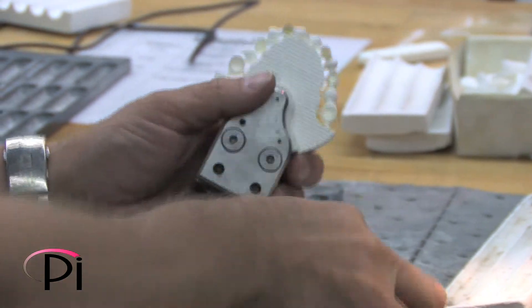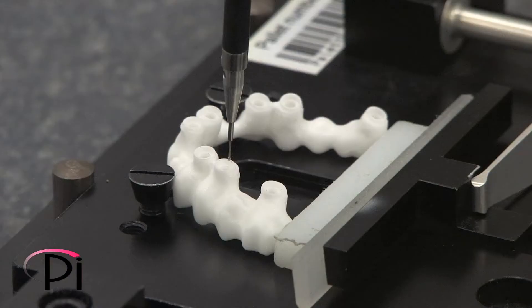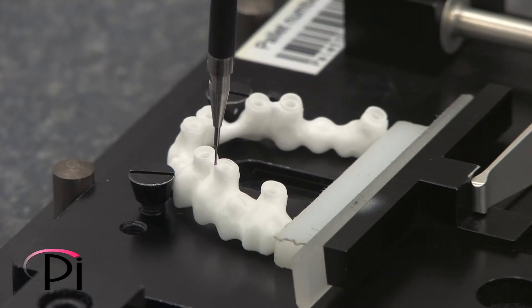At the PI Dental Center, we offer only the highest quality solutions built with high-end materials and crafted by technicians with decades of experience.